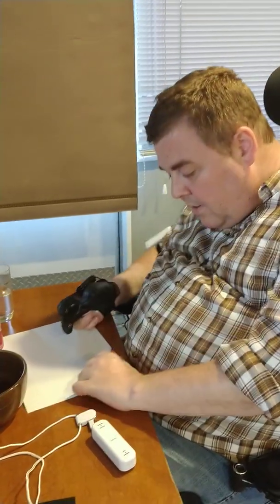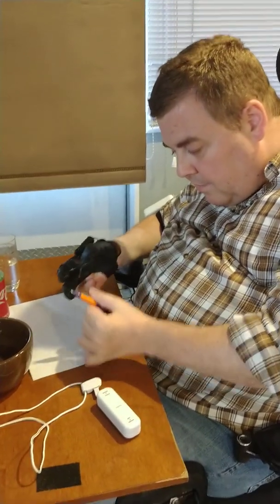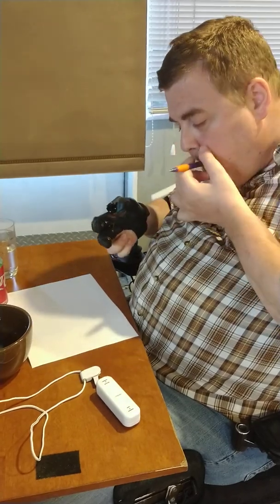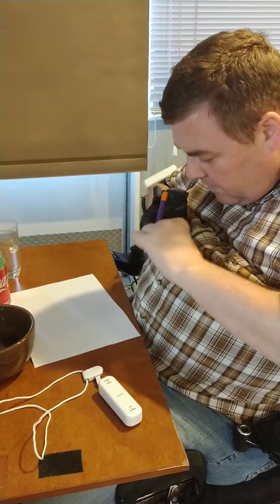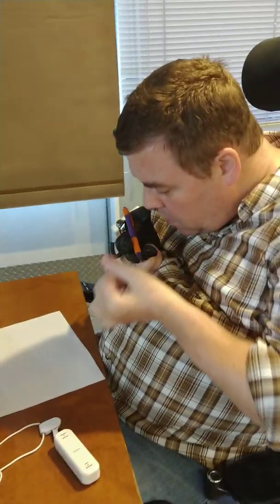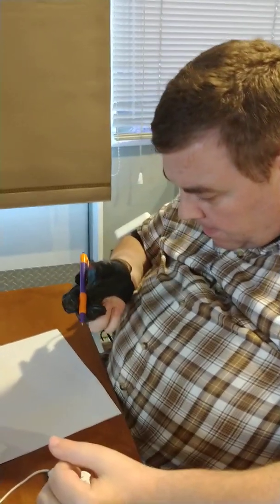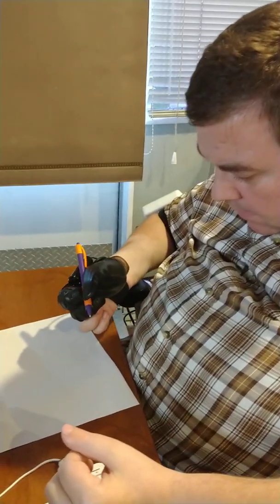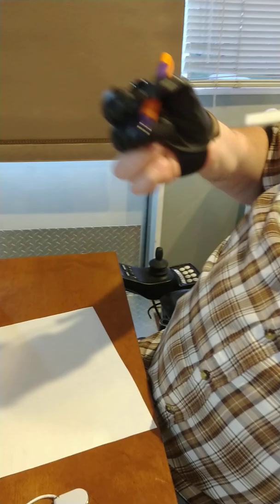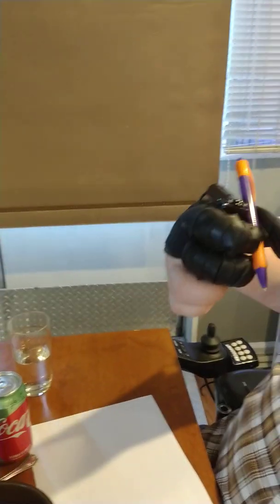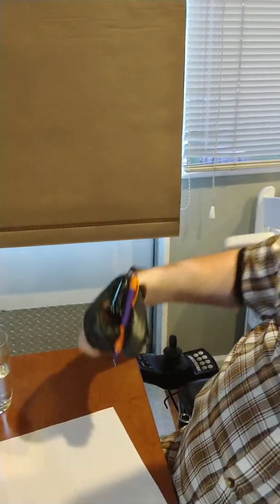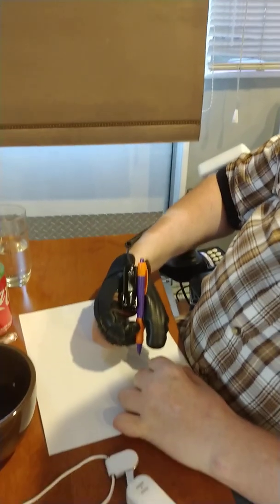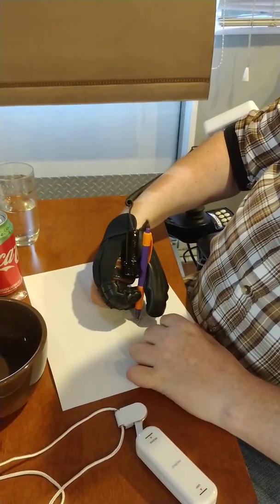Okay, I actually got a pen here. I'm going to try to write something with the Neo Mano. I can figure out how to get this in my hand, so I've kind of got a grip. This is a pen with somewhat of a rubberized grip. The fingers are curling in. It's not the most ideal.